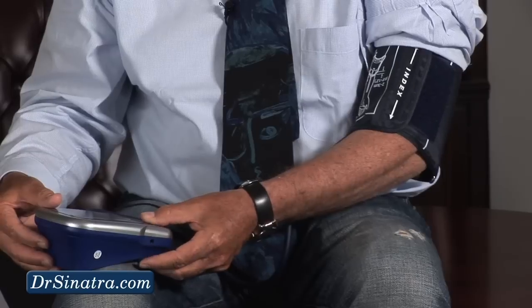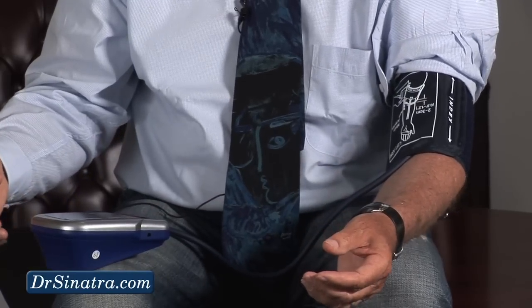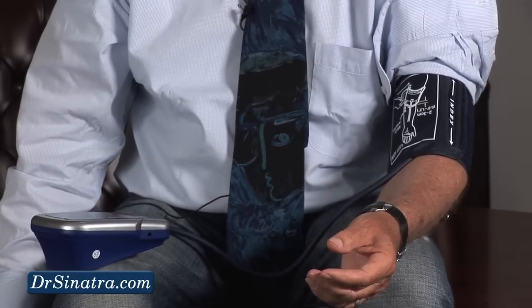So, I practice what I preach. I don't have high blood pressure. I eat a non-inflammatory diet, I get a lot of exercise, I take lifestyle and nutritional supports, I do mind-body measures. So, let me try it and see what happens. I press the M, and now it's working.